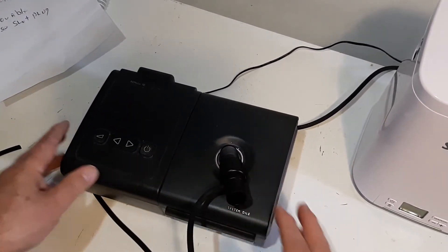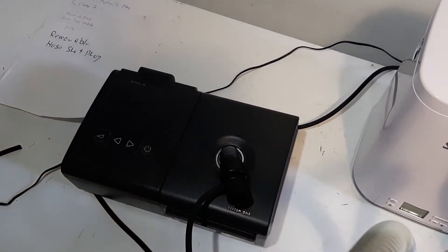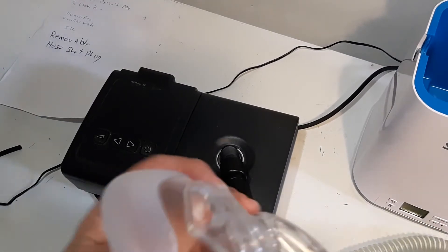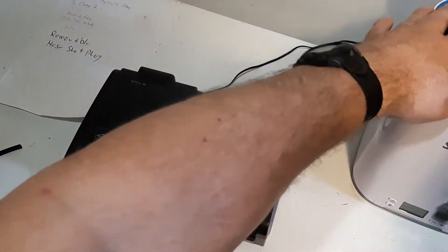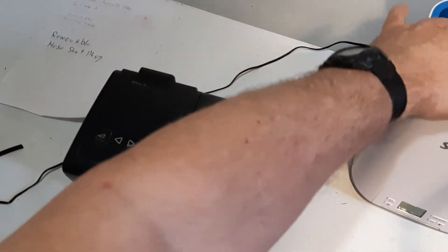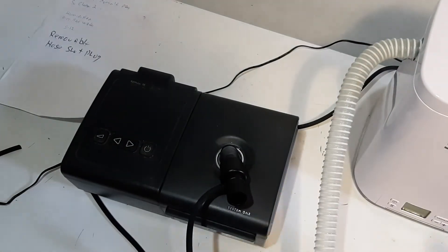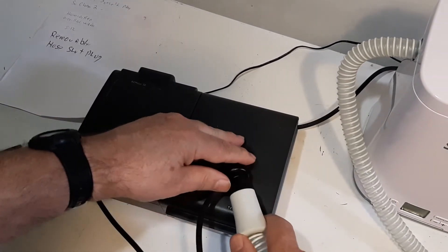Now there's an adapter on here for your mask. Here's your mask — you set it inside the SoClean here. I leave the harness that goes over the back of your head — I just leave everything in here. Put the whole mask in here. Like I said, it's just enough room for my mask to fit inside this SoClean. I'd have to adjust it a little bit more. So now it's in there and you hook up your hose to the adapter.